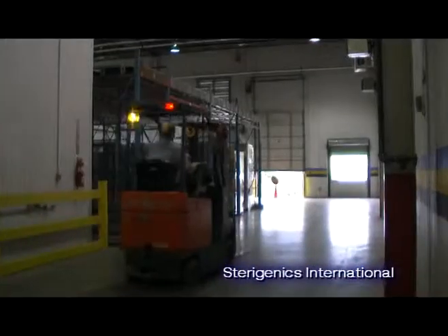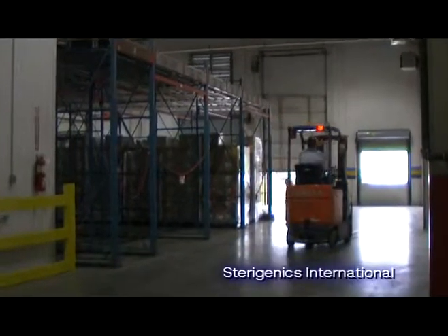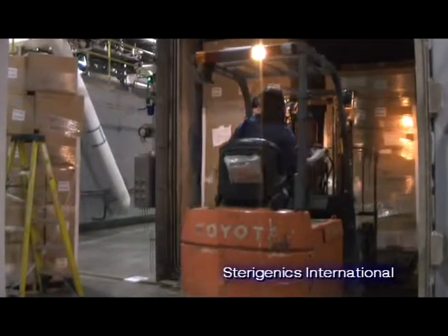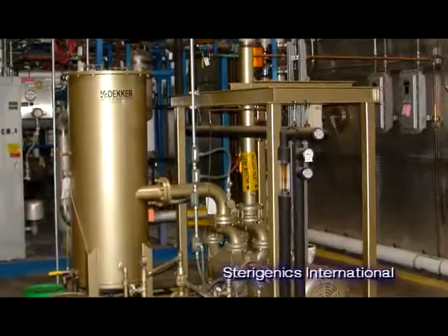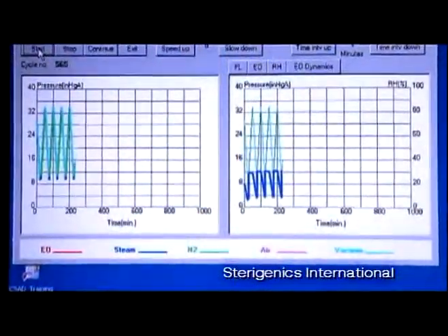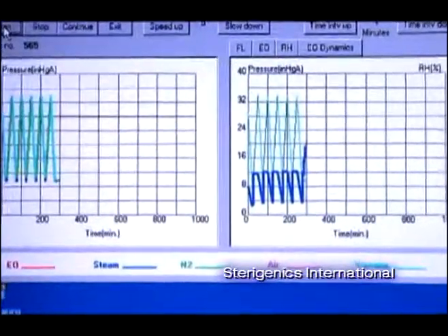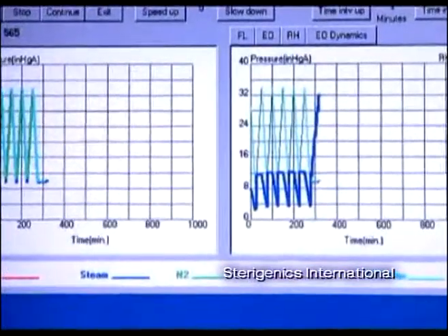Product is then transported a short distance to the EO chamber for sterilization. After the product has been loaded, the chamber is sealed. Air is then removed from the chamber by use of a vacuum system. In most cases, steam and nitrogen are then injected into the sterilization chamber. Pure ethylene oxide gas is then introduced until required or validated concentration levels are achieved.